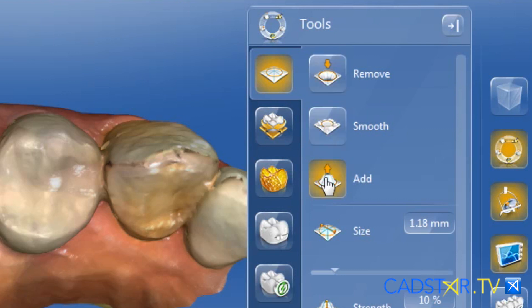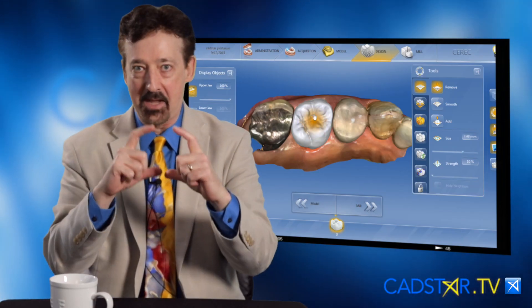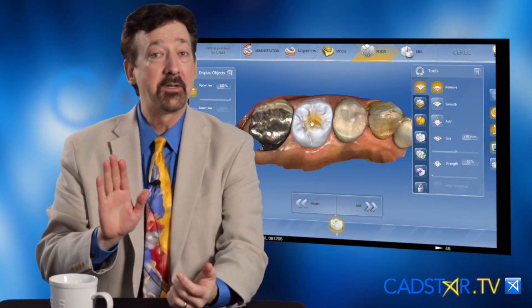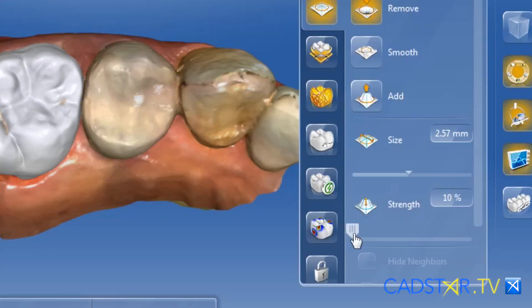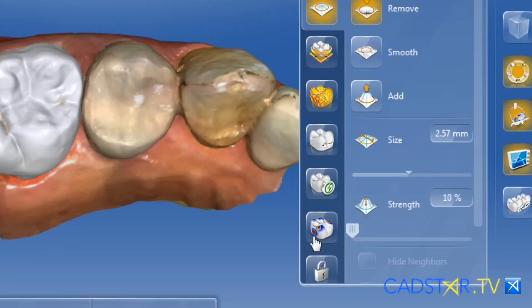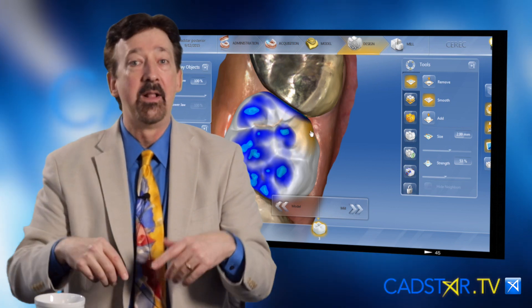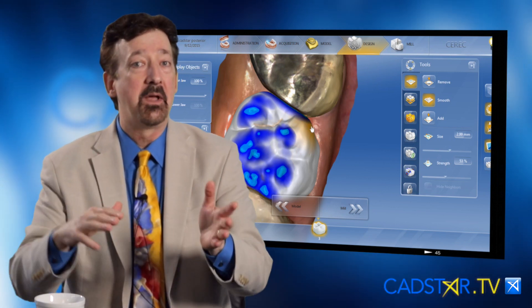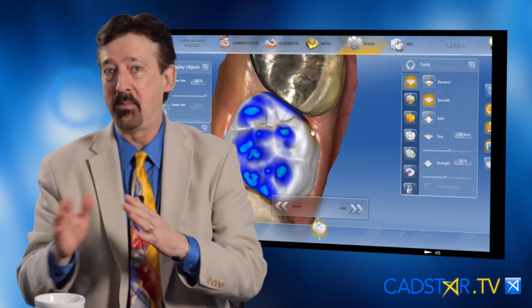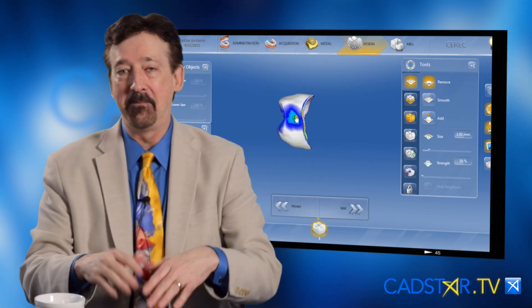I like the form tool because I have two features that are really beneficial: I have paintbrush size, and I also have my strength option. I can effectively do subtle — and I'm going to repeat that operative word — subtle adjustments on my design screen.